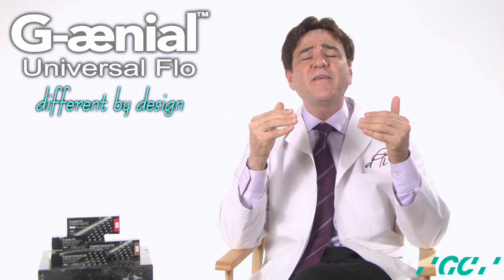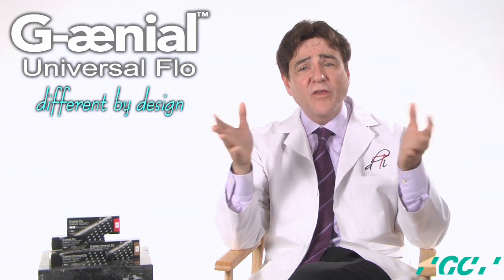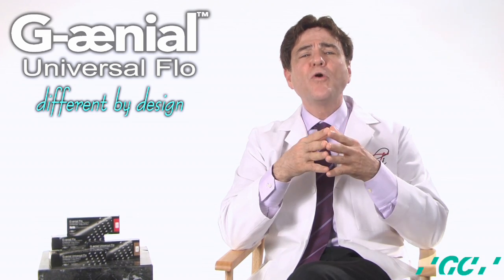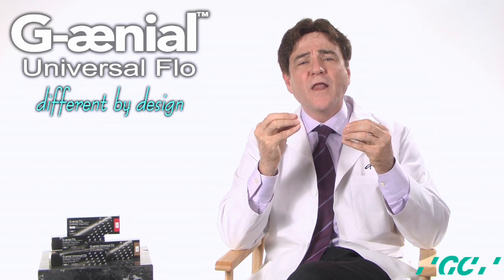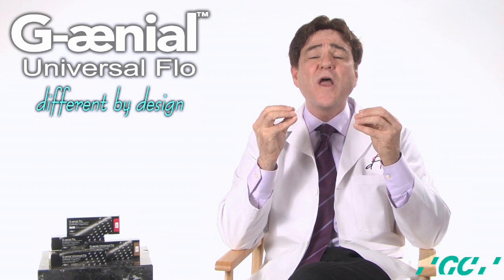In view of all of these considerations, it is understandable that clinicians have uncertainties about selection of biomaterials and techniques to optimize the material's properties and achieve predictable long-term results. To improve this selection process, the restorative dentist must have a working knowledge of these consideration factors and integrate this knowledge with the proper technique for each clinical situation.